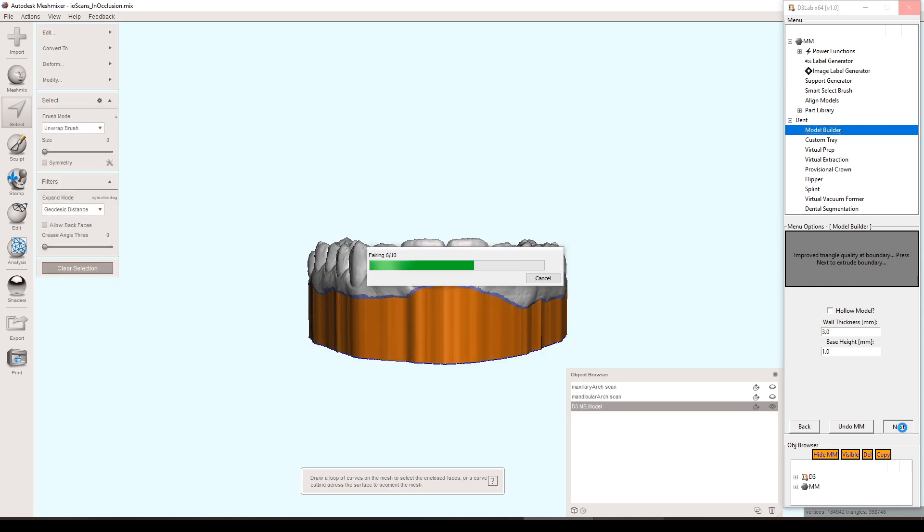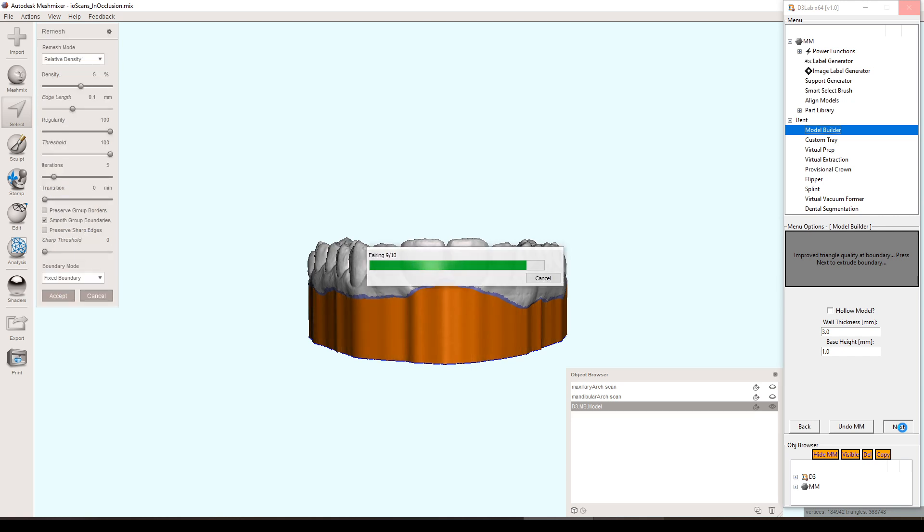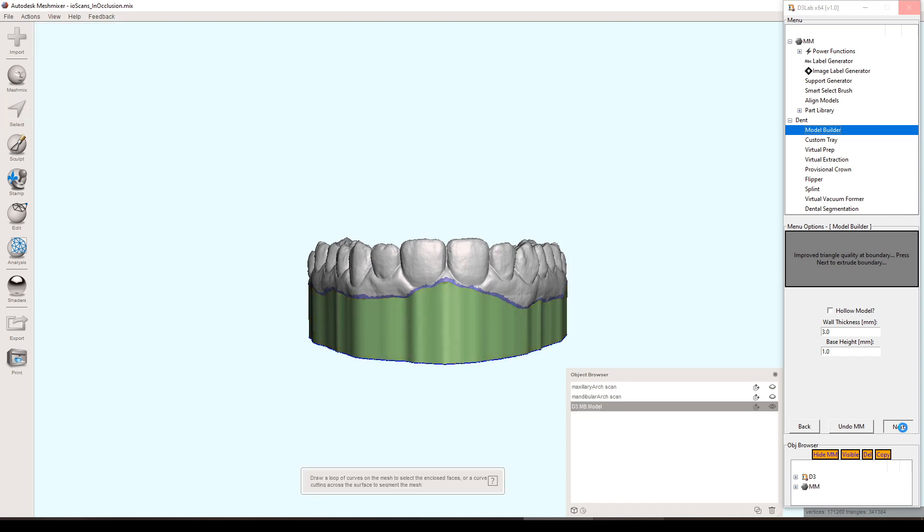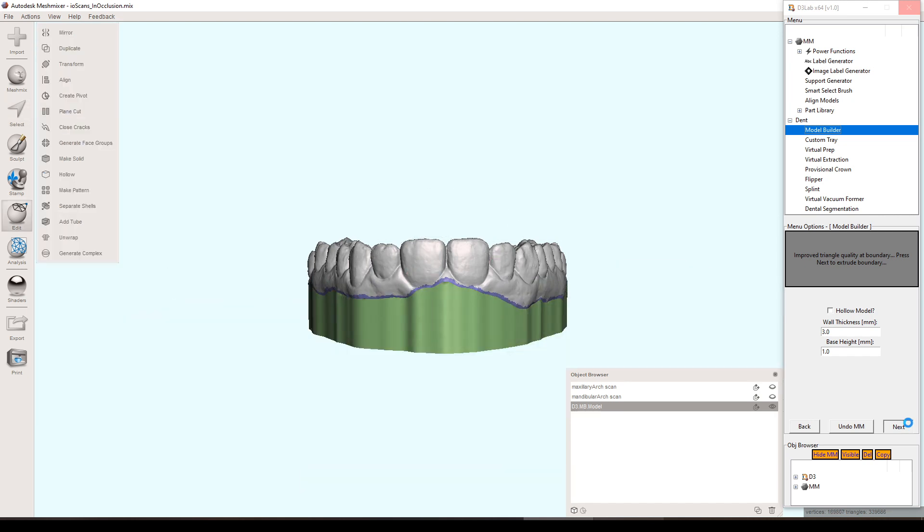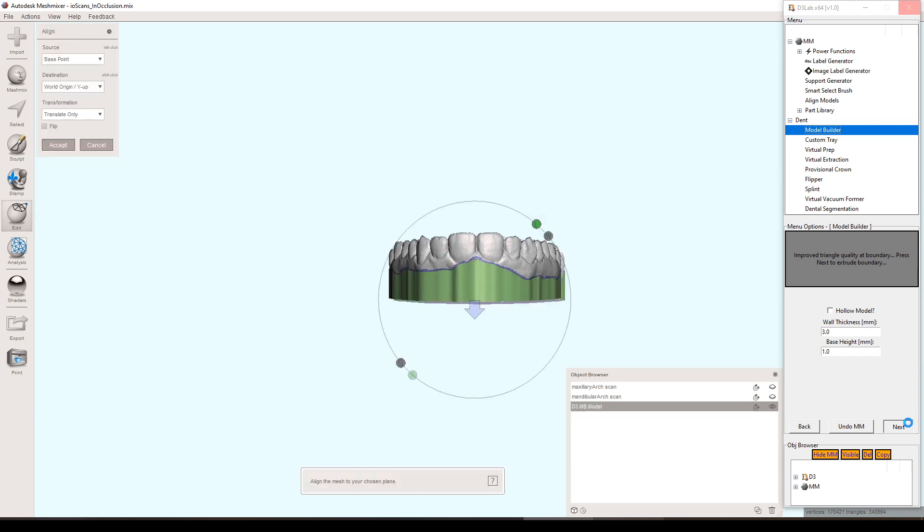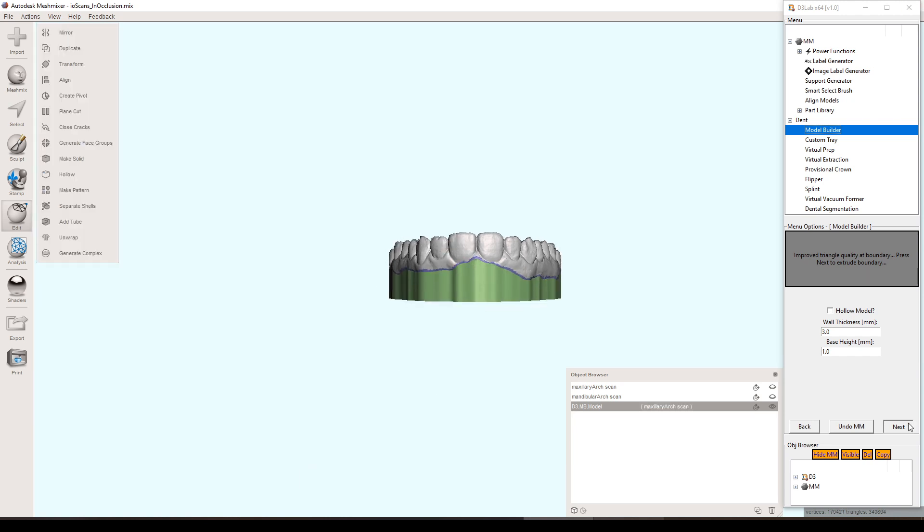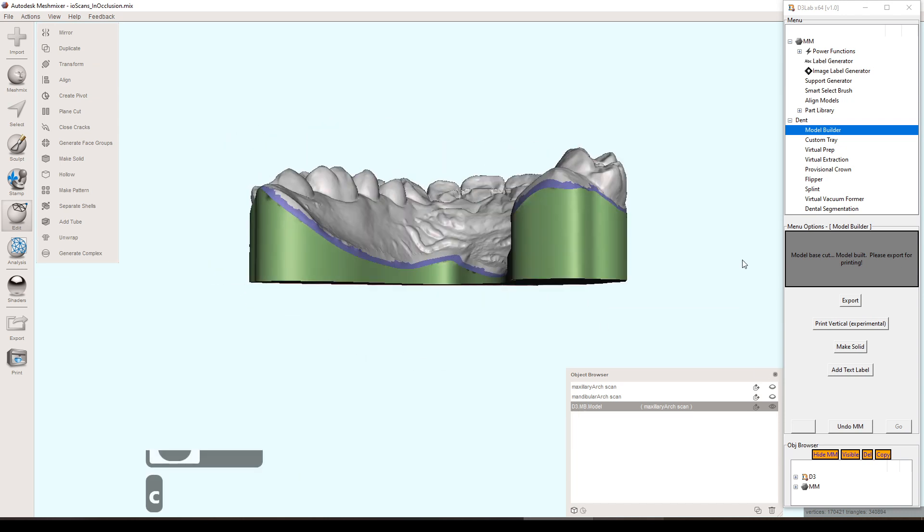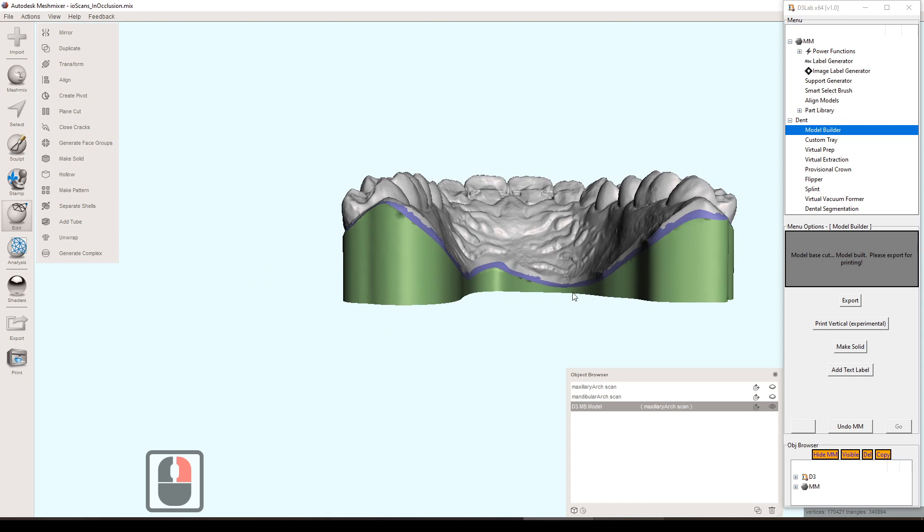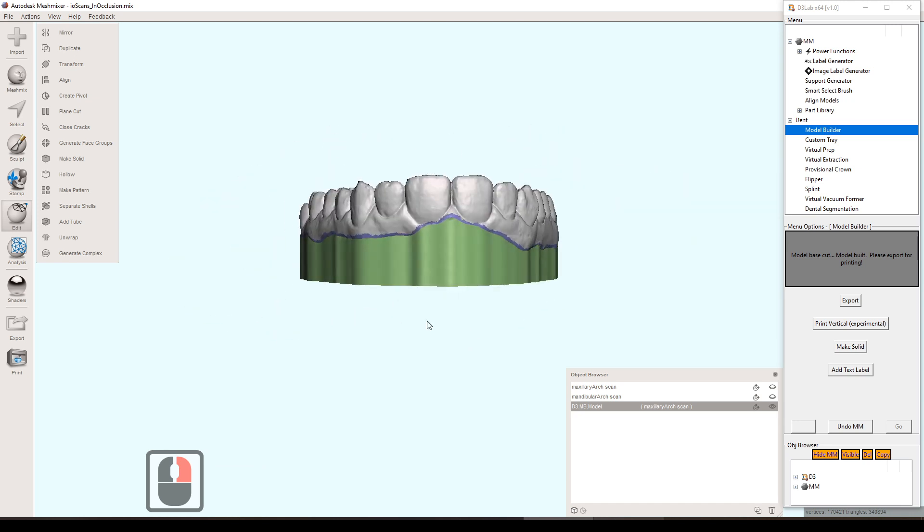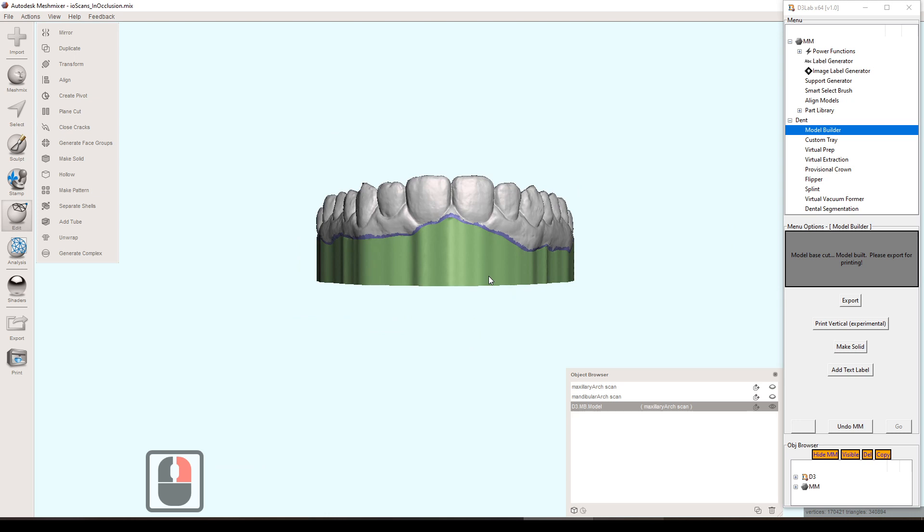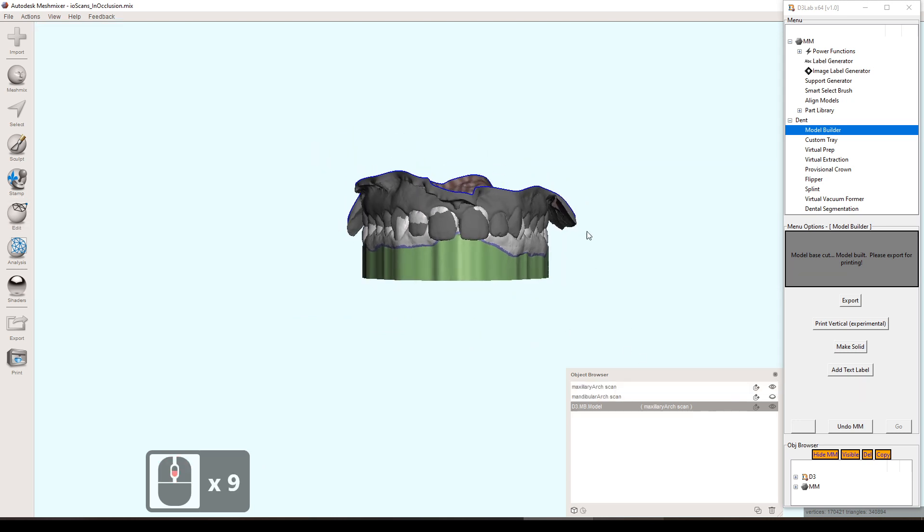And if I'm not mistaken, I think that's it. You just sit here and wait and it will be the base model at the end. So at first it does like an overextrusion. Especially in this case, we didn't choose hollow model, but if you were to hollow it, it would need to extrude whatever distance you did plus the thickness just to make sure that it did the cuts right. So that's just showing that there is that one millimeter that we had as far as the base height, even though it looks way more from the front here. It just goes from the lowest part there. So it was actually one millimeter, even though it looks way more than that.